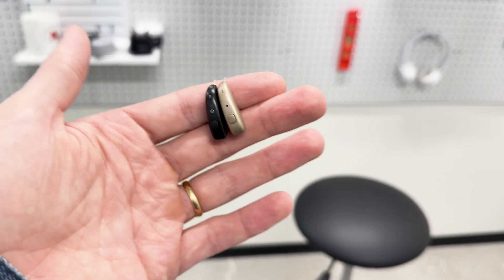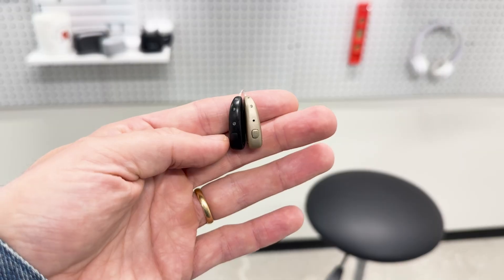Speaking of battery life — amazingly, ReSound Vivia is just as small as ReSound Nexia, which is the smallest RIC on the market. I don't know how they did this, because they added a second AI chip alongside the original chip, yet this hearing aid still lasts 20 to 30 hours. If you don't use AI mode and stream only a couple of hours, it'll last up to 30 hours. If you use AI mode for several hours a day, it'll last around 20 hours. I have not run out of battery, recharging every single night.